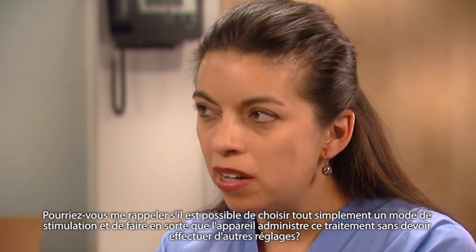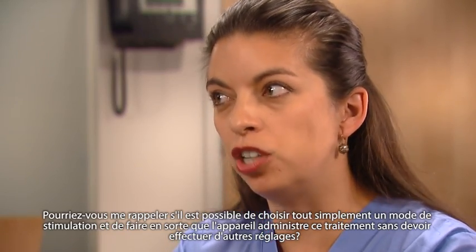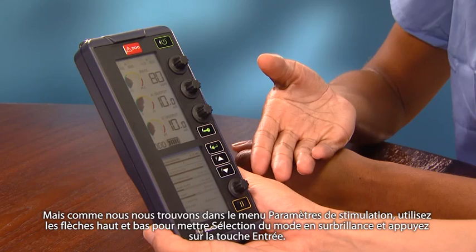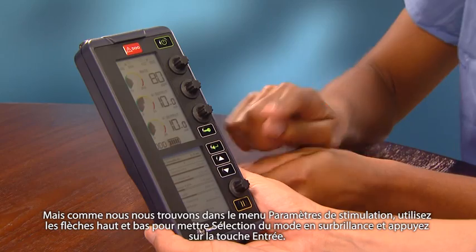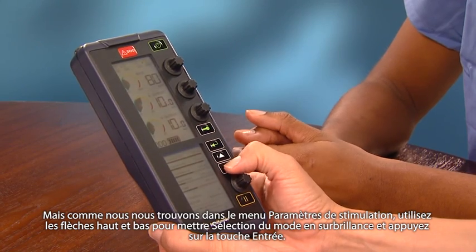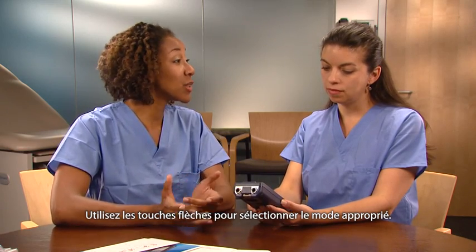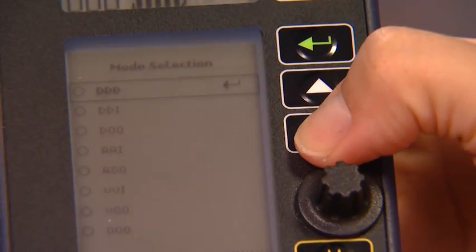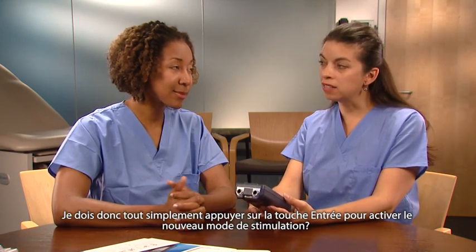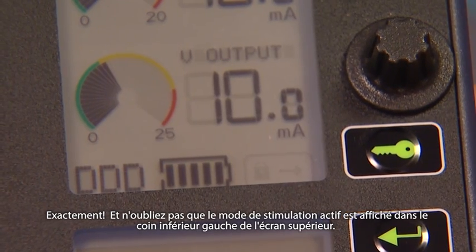Is it possible to just pick a pacing mode and have the device deliver that therapy without having to make any other adjustments? Certainly. The mode selection menu is displayed in the lower screen when the 5392 is turned on. But since we're in the pacing parameters menu, use the up and down arrows to highlight mode selection and then press the Enter key. Use the arrow keys to select the appropriate mode, then press the Enter key to activate the new pacing mode. The current pacing mode is shown in the lower left corner of the upper screen display.